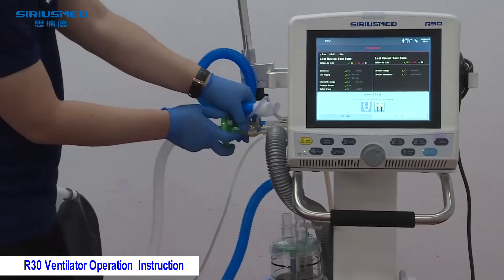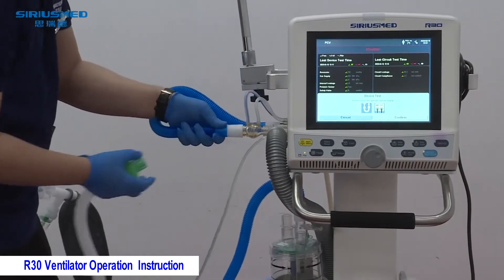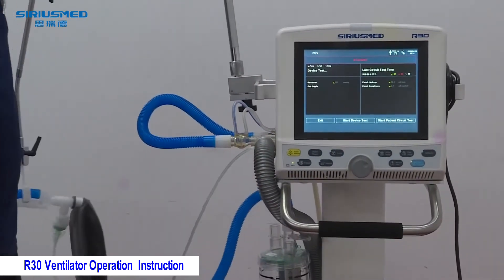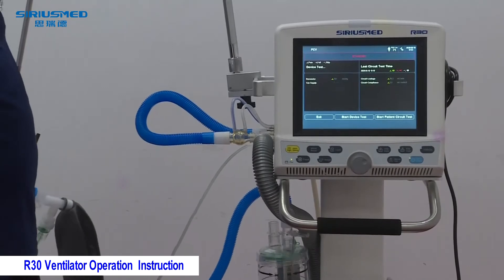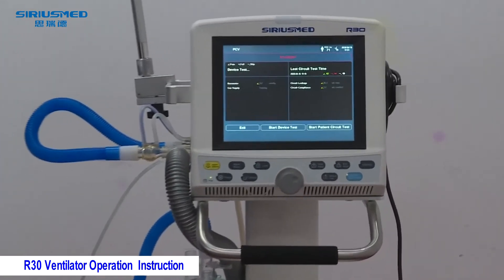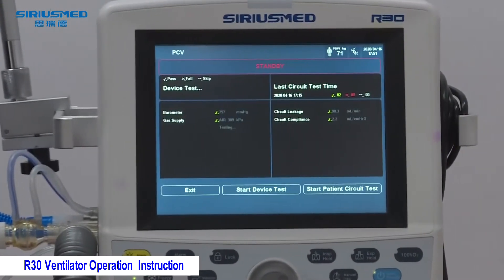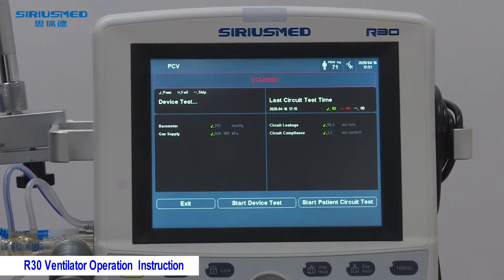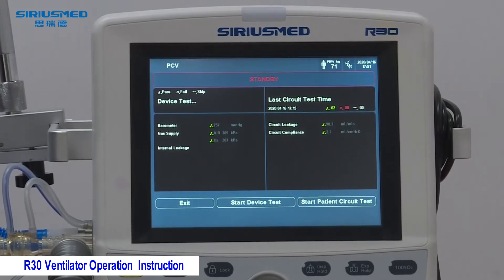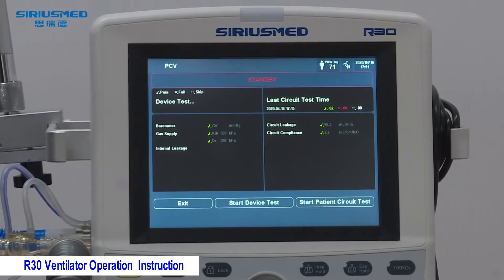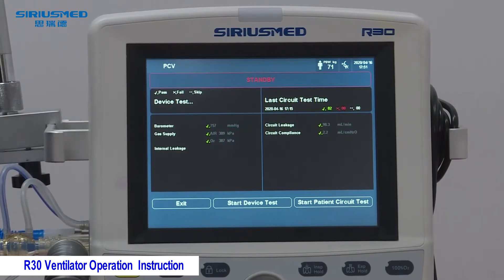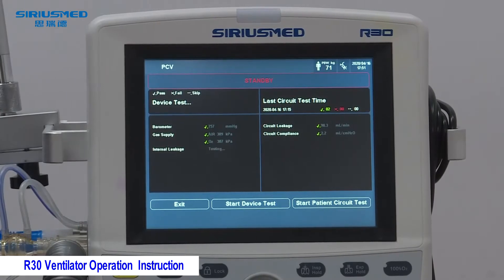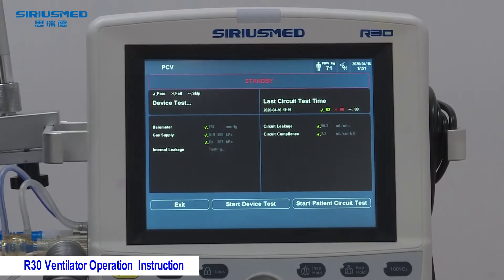Connect the inspiration and expiration parts together using a tube, like this, and then press confirm. The machine will run the test by itself. Note: in the office we don't have oxygen, so we have skipped the oxygen sensor test. However, it is very important for doctors to perform this test in the hospital when the oxygen gas supply is connected — the oxygen sensor test will then be done automatically.